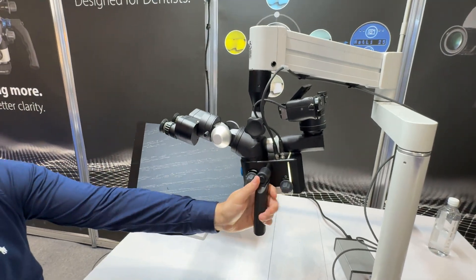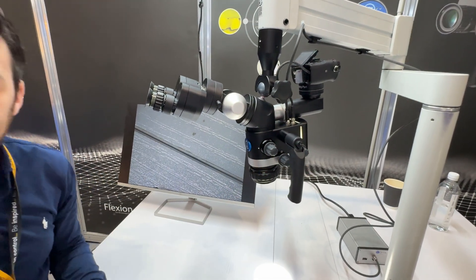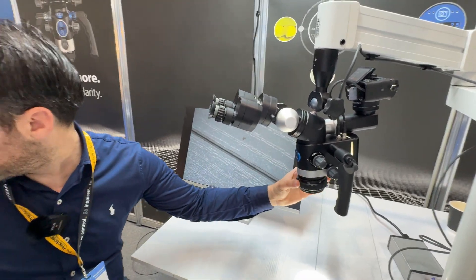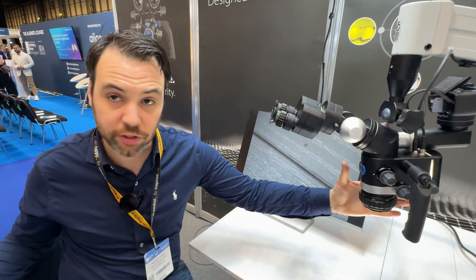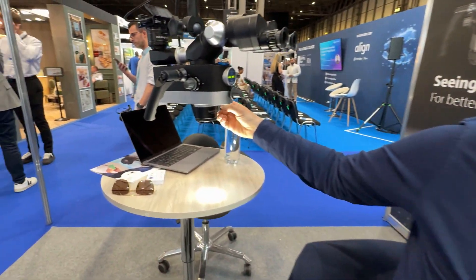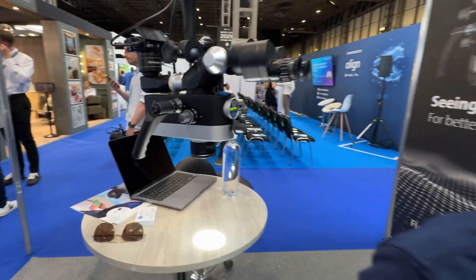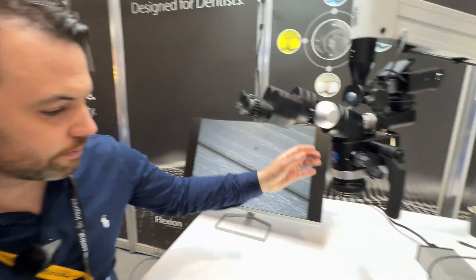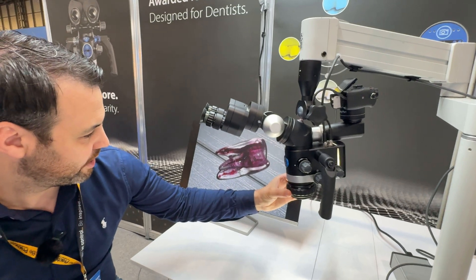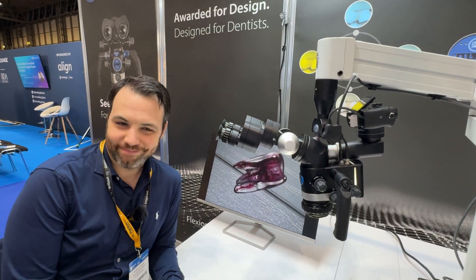How does that connect to the camera? It's infrared with the remote control. This is the most popular scope because it has the camera and the vario - the two main things everyone wants. What's the vario on this one? This is the new vario up to 500 millimetres - that's how the new vario looks now. That's what I like - just a little dial there. I'm absolutely blown away by the 500 range. You'll never not be in focus. Thanks Robin!